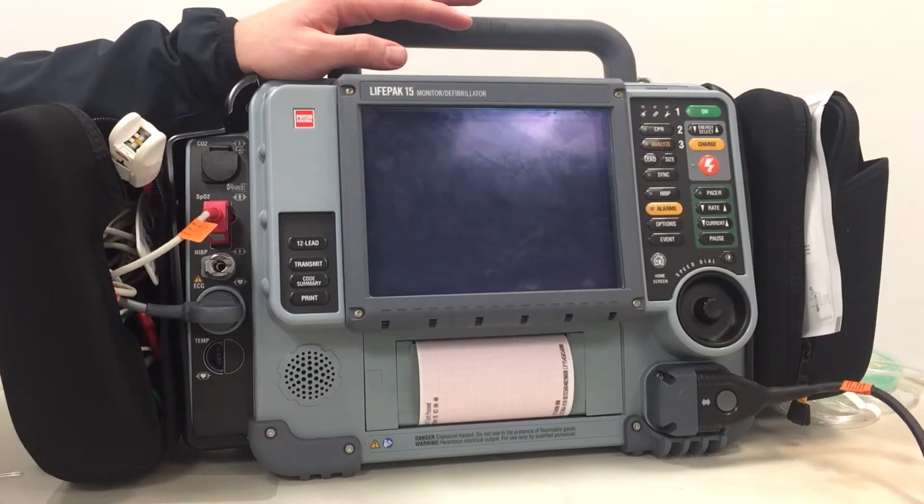I'm Mark Andre, a second-year emergency medicine resident at Mount Sinai. This is a tutorial on the LifePak 15 defibrillator by PhysioControl that we're going to be using for the next several months during cardiac arrest.